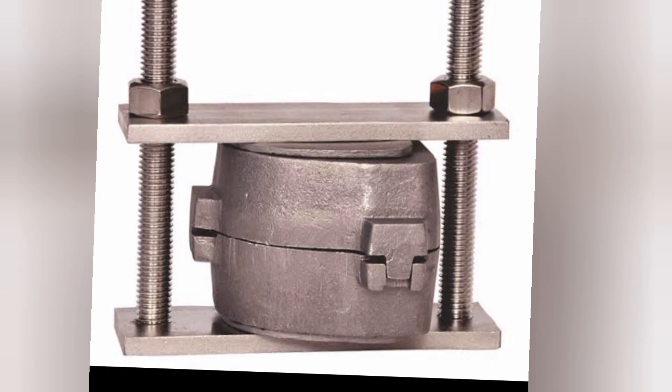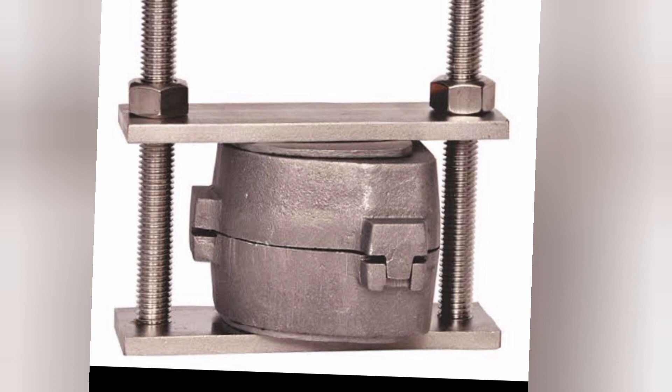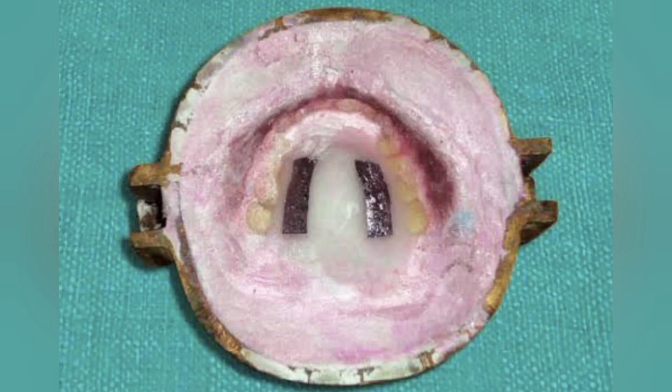After positioning the upper portion and performing the second and third pours, clamping is done. Clamping removes excess dental stone and material. A particular pressure is applied during clamping and it is left in the clamp until the plaster sets.